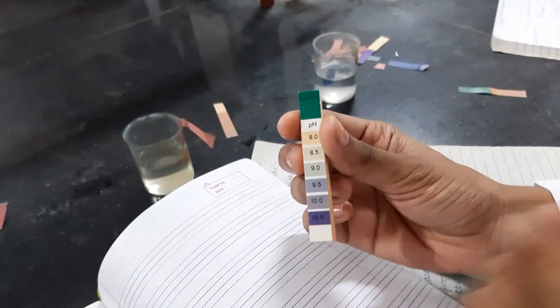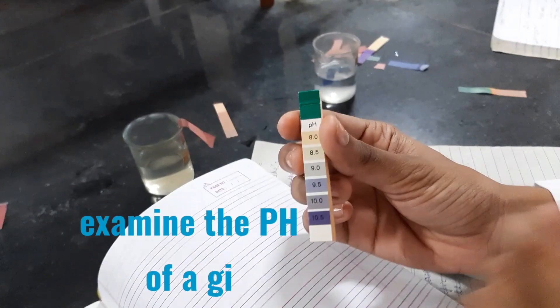In this video I am going to show how to examine the pH of a given urine sample.